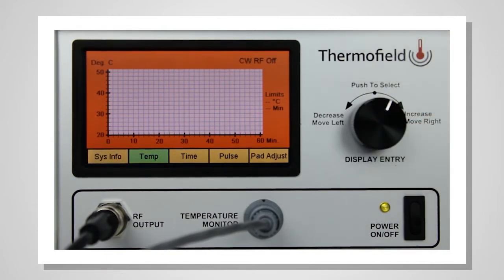The unit is now ready to begin a new treatment. The advanced settings can only be adjusted before or after a treatment. Once you turn the unit off, the advanced settings will revert to their default positions.